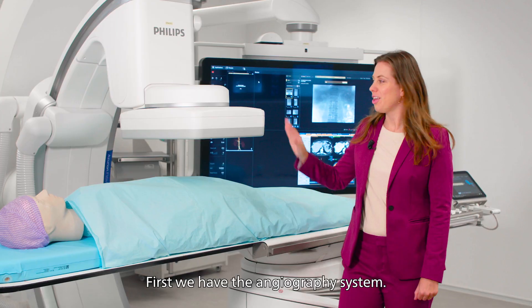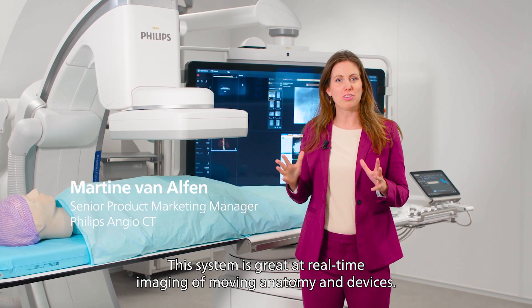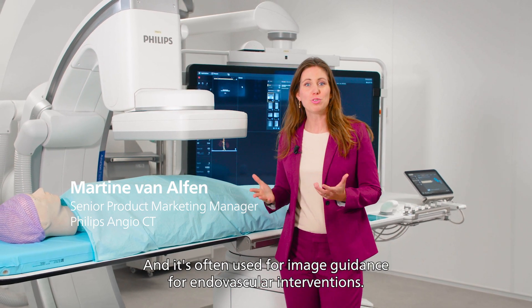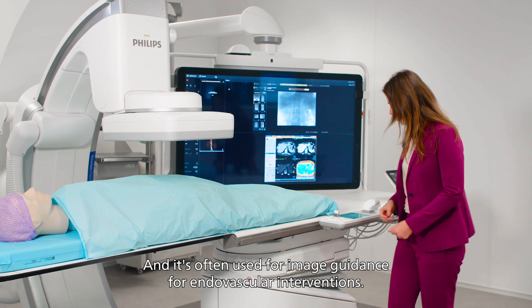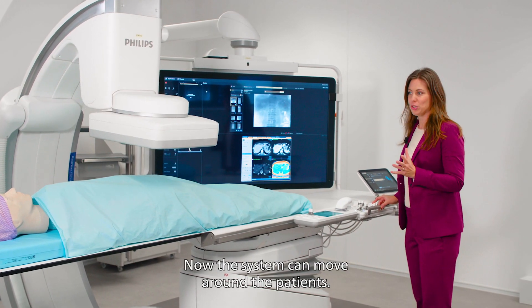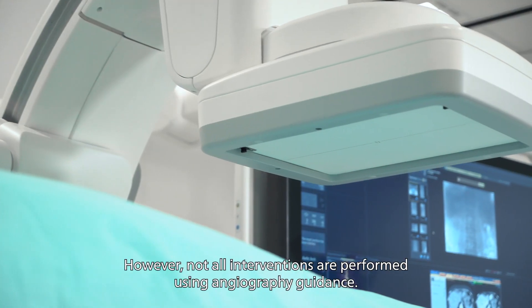First, we have the angiography system. This system is great at real-time imaging of moving anatomy and devices and is often used for image guidance for endovascular interventions. The system can move around the patient so the physician can view from any angle.